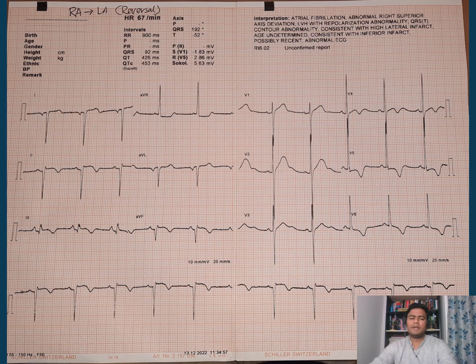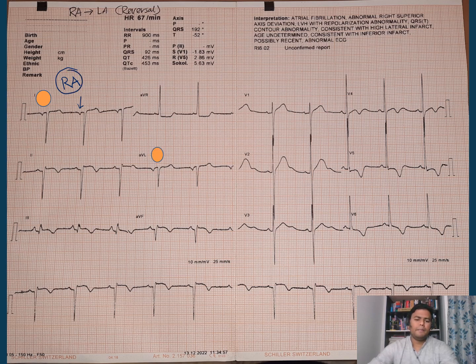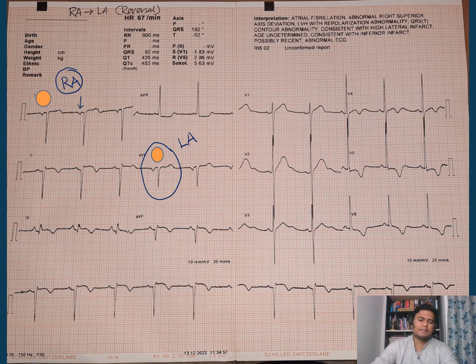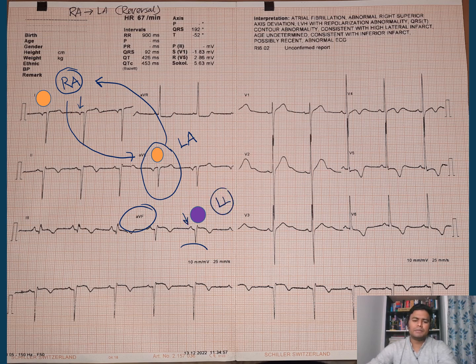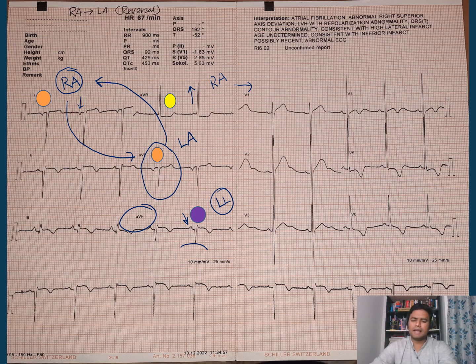In this subsequent ECG, lead I has an inverted P — very important. Whenever lead I has an inverted P, the RA lead has probably moved away from its position. AVL is also inverted, and AVL is related to the LA lead, so the LA lead has also moved away. There must have been a reversal between those two leads. Checking lead AVF: the P is not inverted, so LL is probably in its normal position. AVR is positive — atypical — confirming that RA has moved away, now sitting at the left arm. As RA moves toward the left arm, leads II and III will change positions.